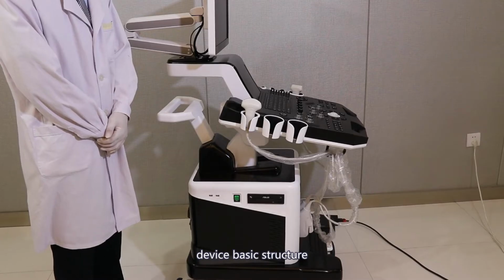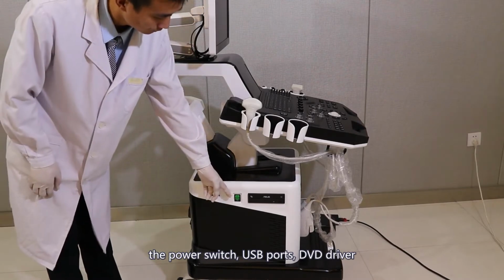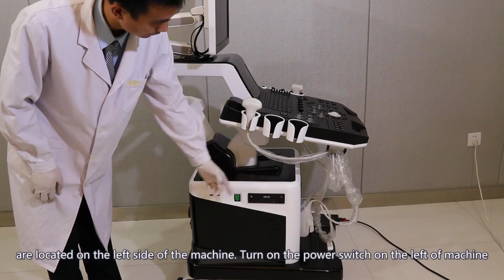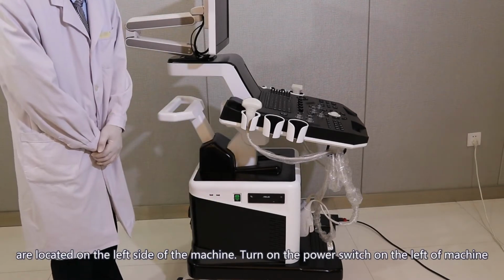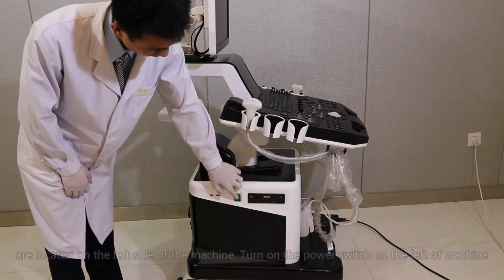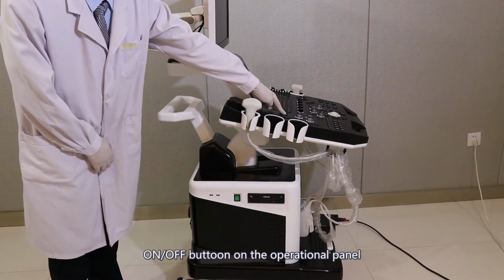Device basic structure: the power switch, USB ports, and DVD drive are located on the left side of the machine. Turn on the power switch on the left of the machine. Press the on or off button on the operational panel.